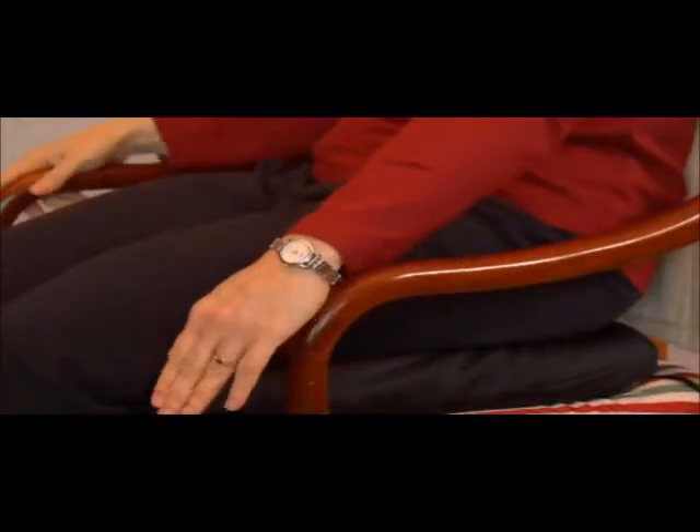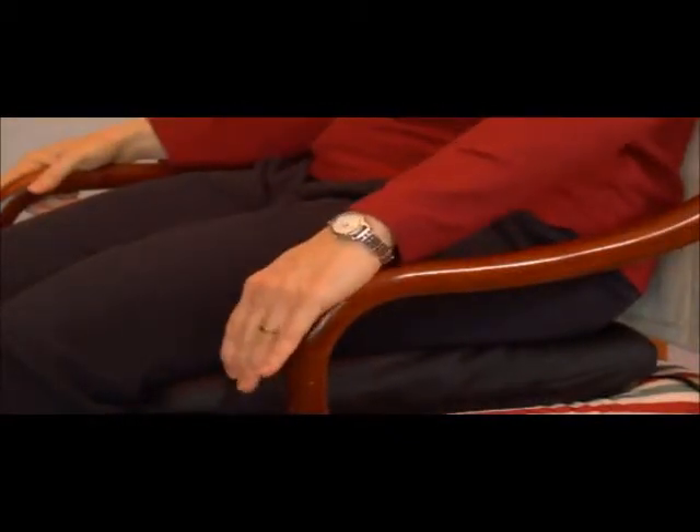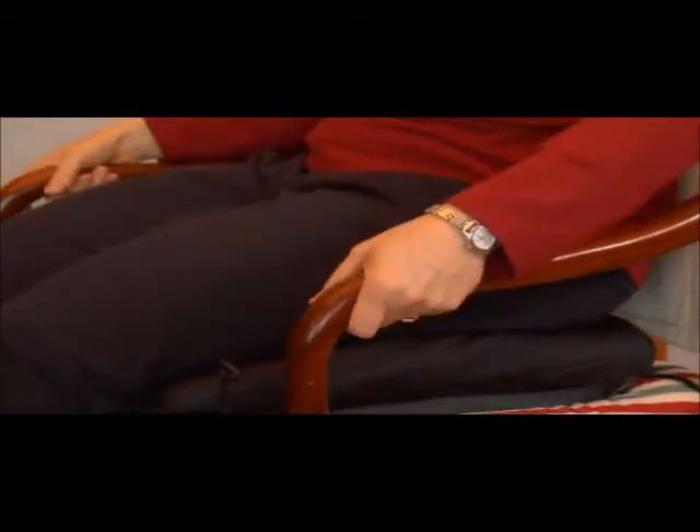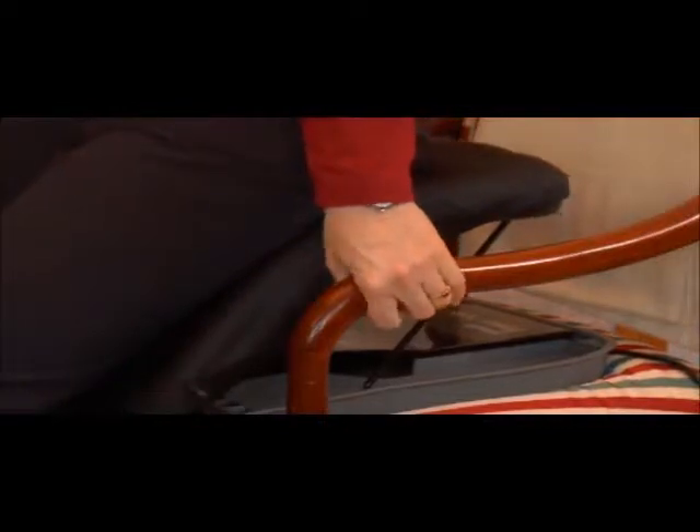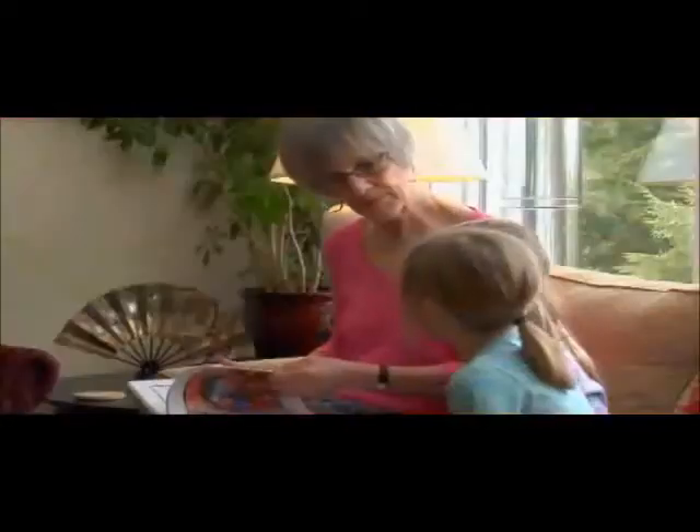For optimal use, the PowerSeat is recommended for people weighing 300 pounds or less. The PowerSeat can lift 100% of your weight. It can help you on a day-to-day basis as needed and is especially useful as a rehabilitation tool, and can be used in almost any room in the house wherever you have a power outlet and a stable armchair or sofa.